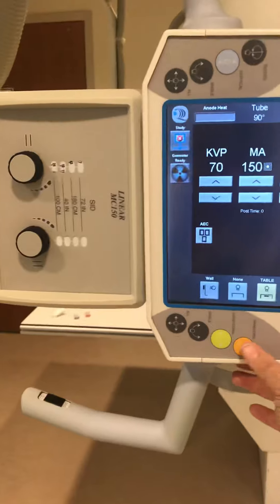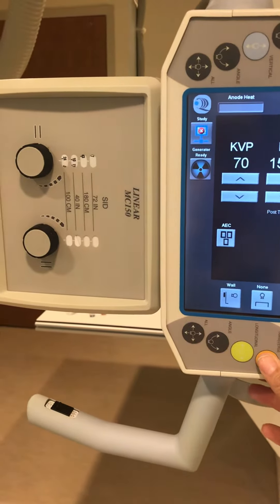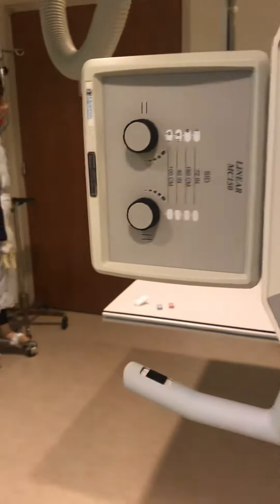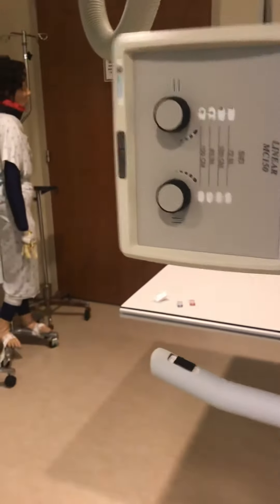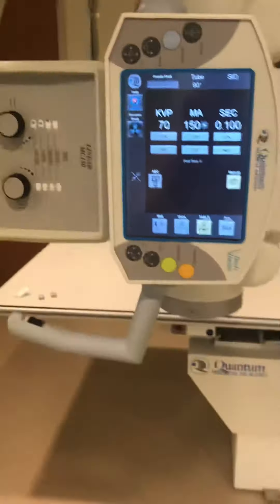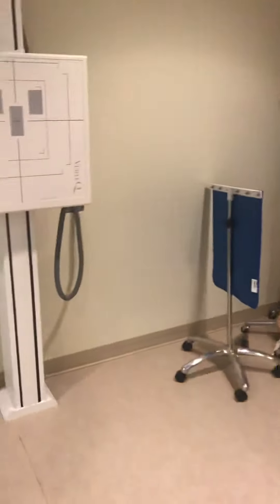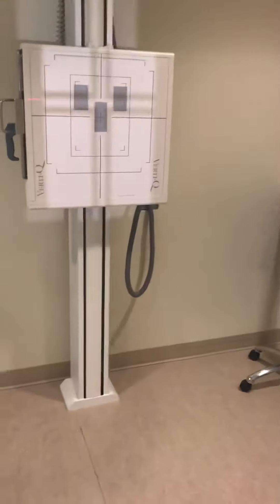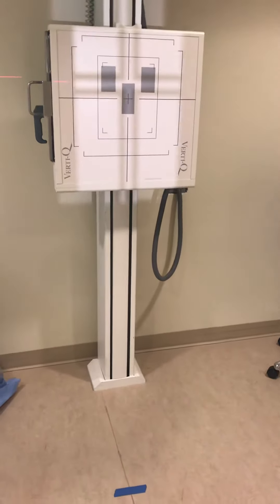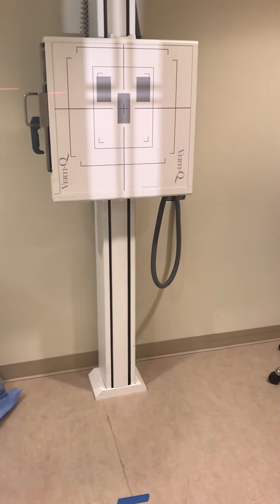I now have to center in and get that transverse to lock in to the wall bucky, and you'll hear a click. When I turn the light on, you can see that the light is on the wall bucky face.